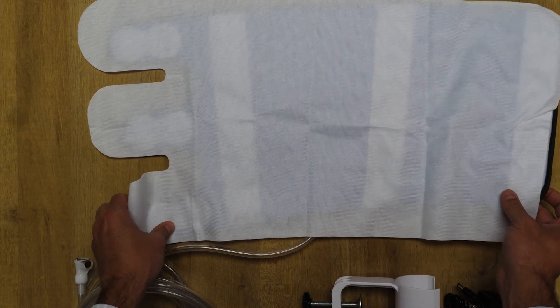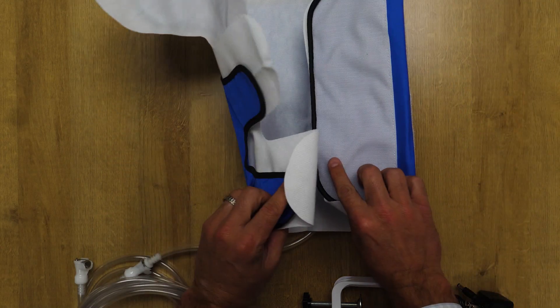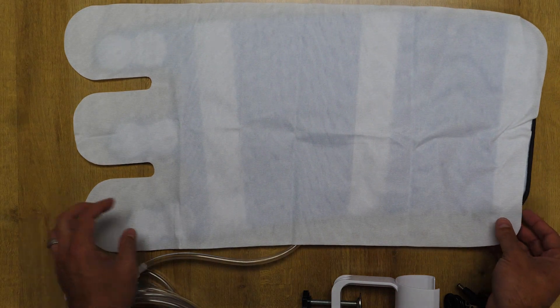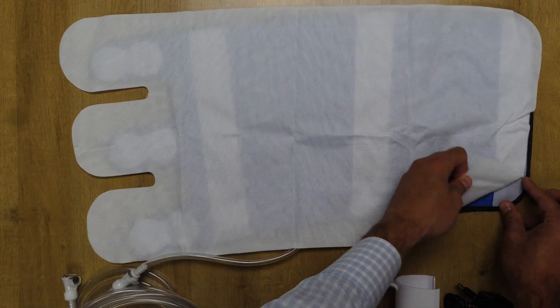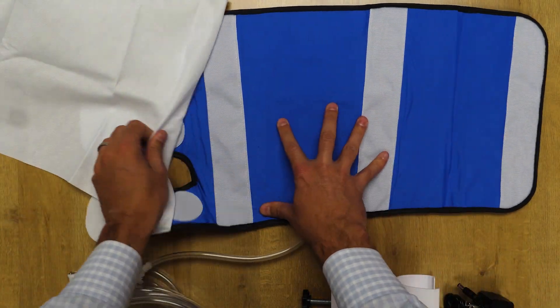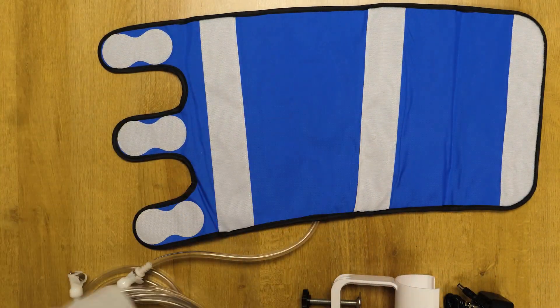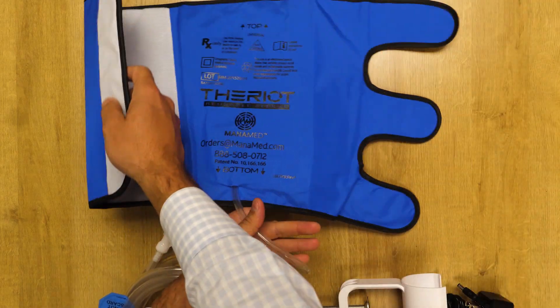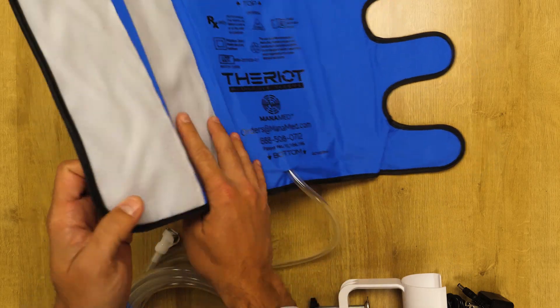When the surgery is active, you would wrap this around the patient and remove it for the next patient. To remove the M32 barrier sleeve, you would slide it off like this. Then you would take a caviwipe and wipe down the blue sleeve for the next patient.